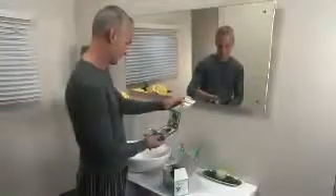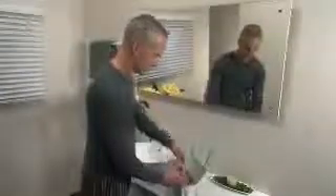Open your box and remove the fitting guide. Follow the simple fitting instructions shown on this guide until you are familiar with your new mask. Take the mask from the box and remove the protective cover.